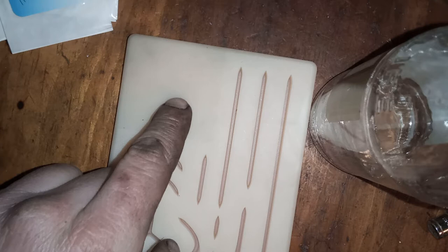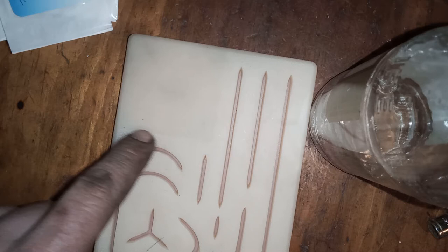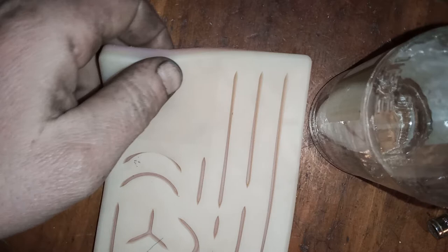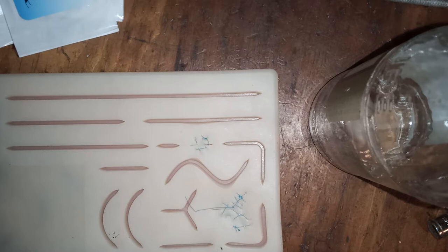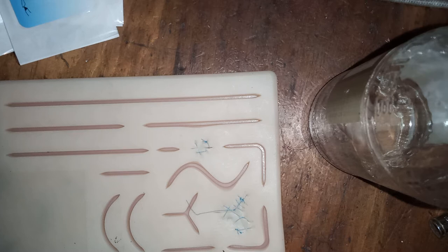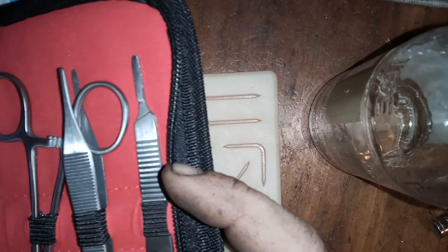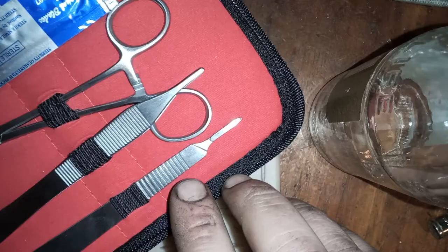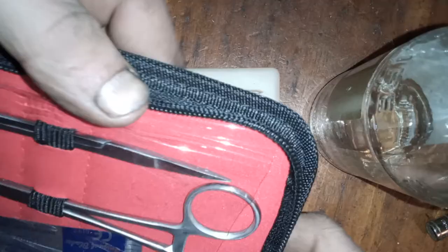This square here is a little darkened out and you can see a line here — I believe there's something over there where you actually have to make an incision and cut it open. I'm not going to get into any of that tonight. You can go to www.trueskinsuture kit.com to find instructional videos. The kit comes with a nice little kit here — these are your blades for the scalpel, your scalpel attachment, and tweezers — or forceps.